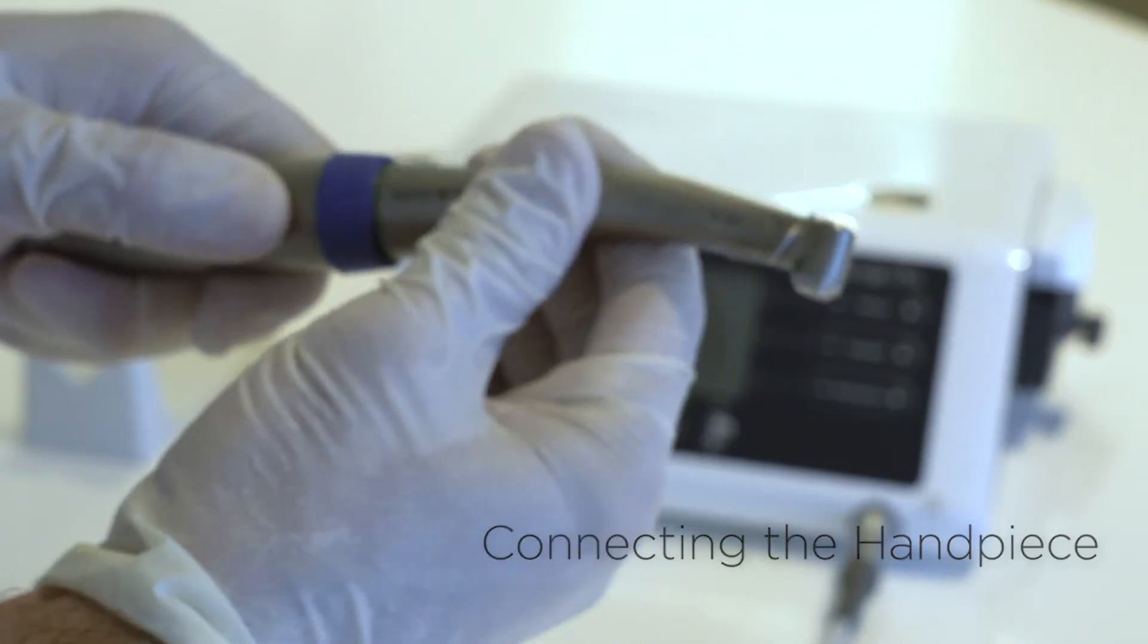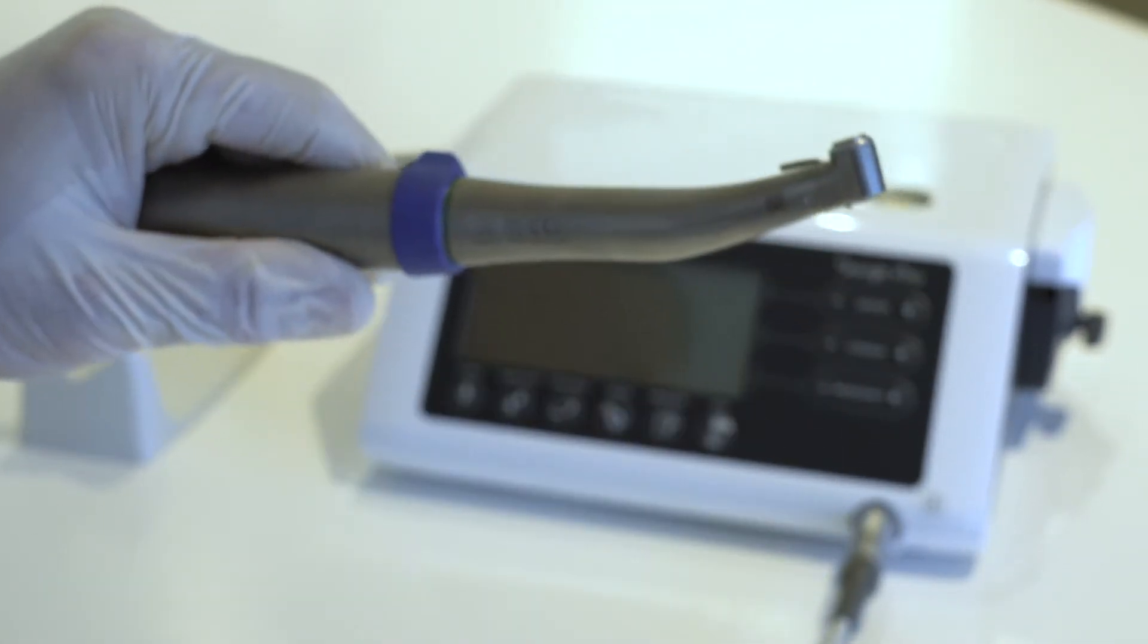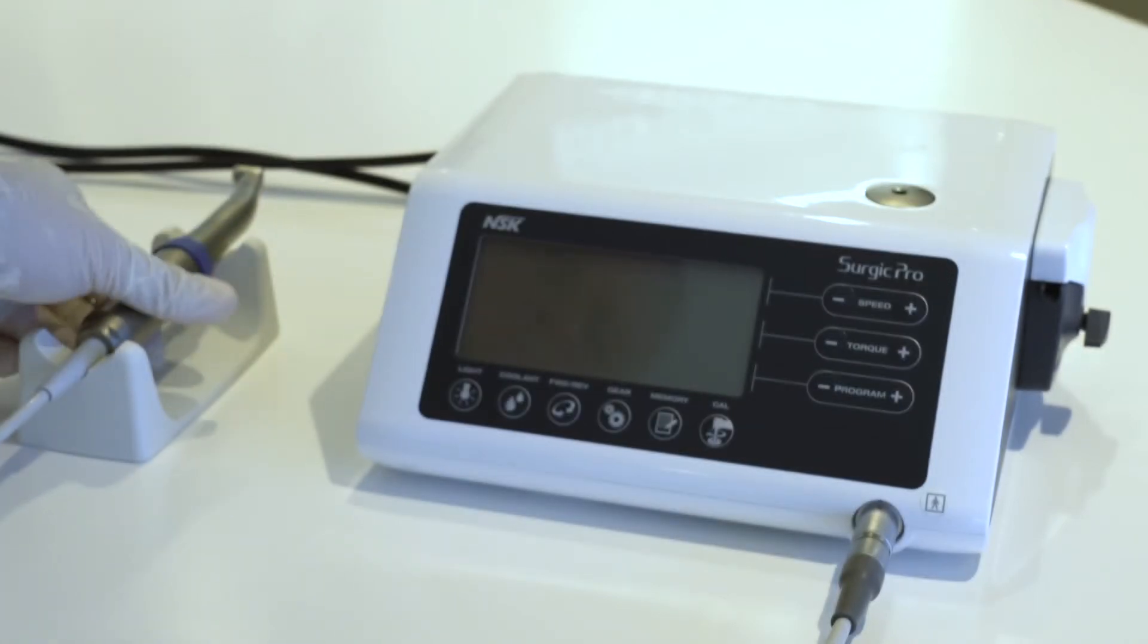Push the handpiece onto the motor, taking care to keep it in alignment. Twist the handpiece until it locks into position with a clicking sound.